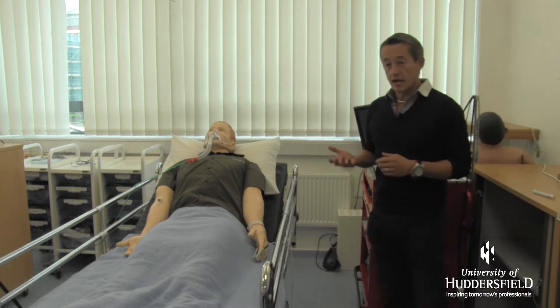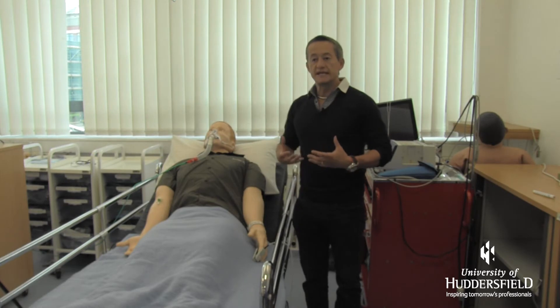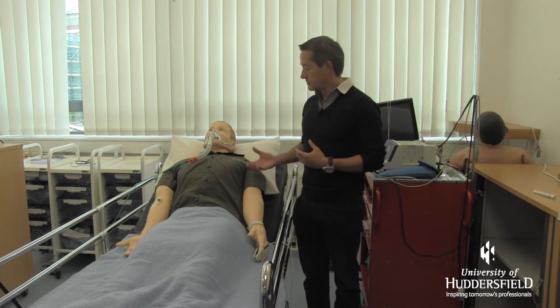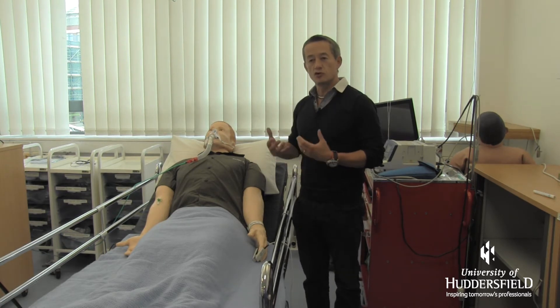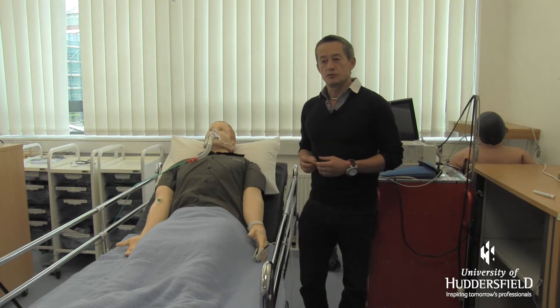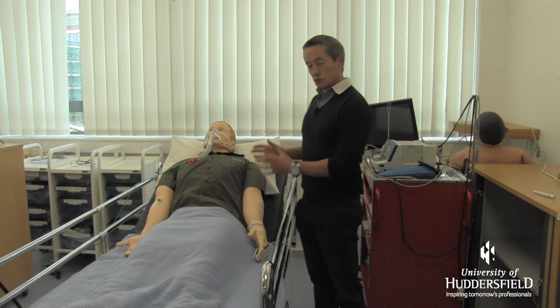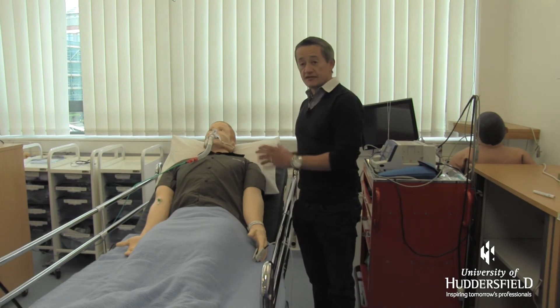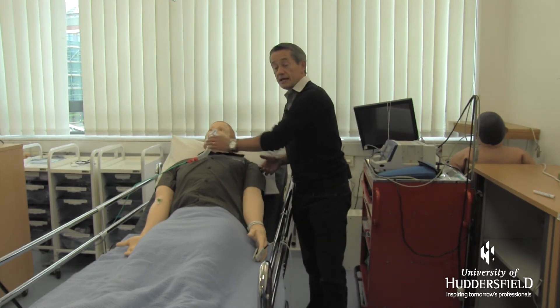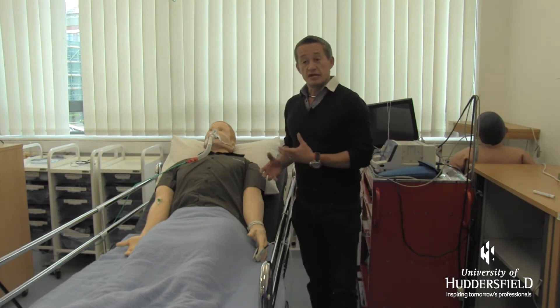In terms of abnormalities, we could set up a program whereby this gentleman has got a bleed inside, and as that bleed develops, just as in a real patient, his characteristics would change. He would start to breathe more shallow and more quickly, his oxygen saturations would drop, his blood pressure would drop, his pulse would become weak and start to race. Students should be able to interact with this mannequin, identify those physiological changes, and if they react appropriately — for instance, if they gave oxygen he may improve — if they didn't give enough oxygen or used the wrong device he may start to deteriorate.